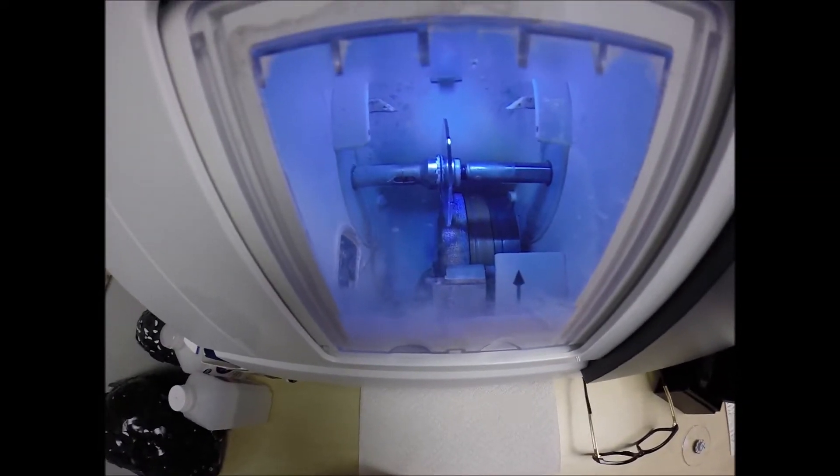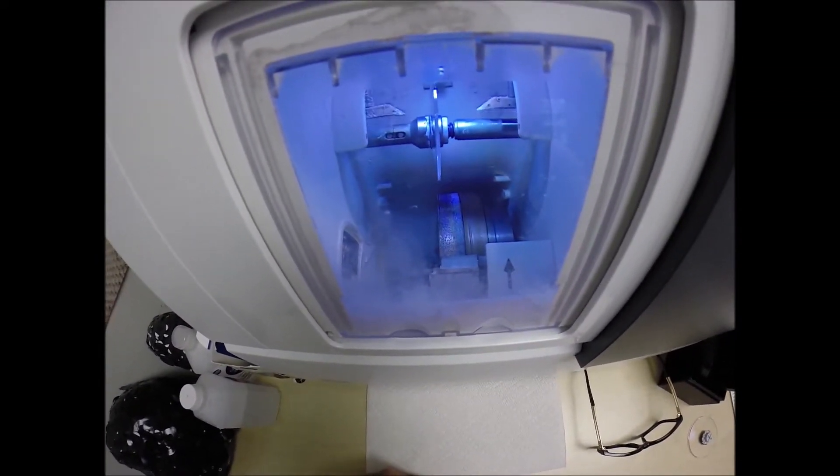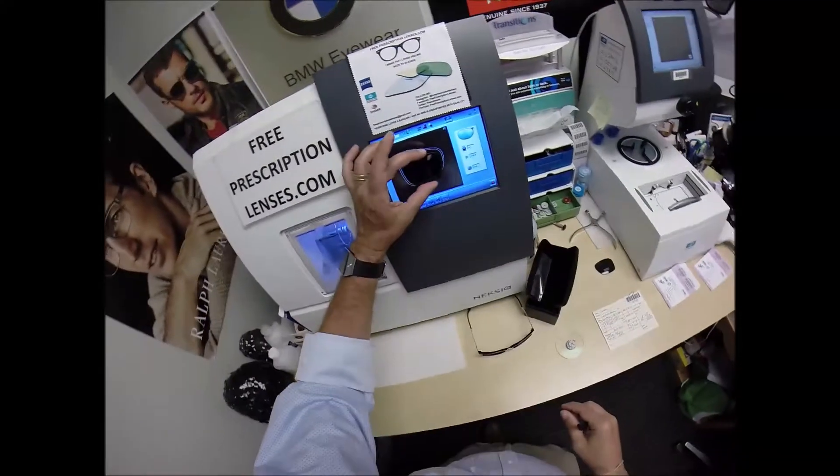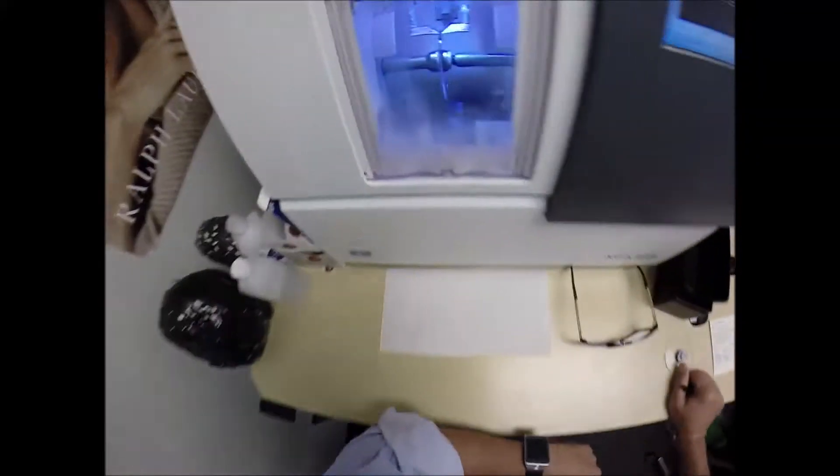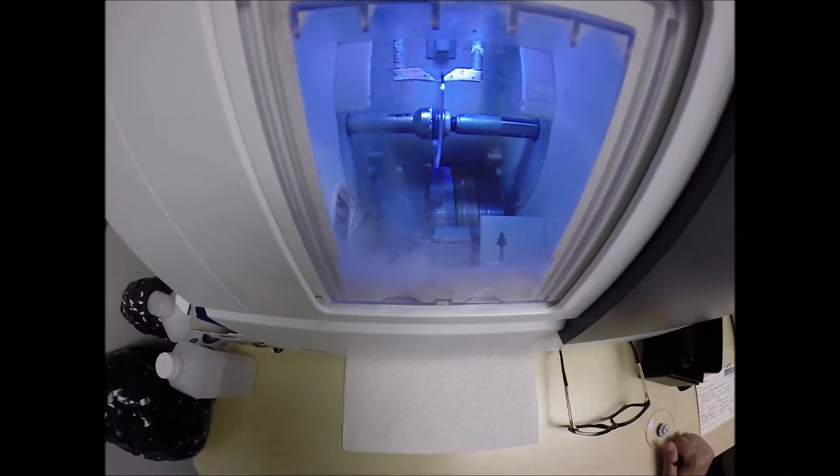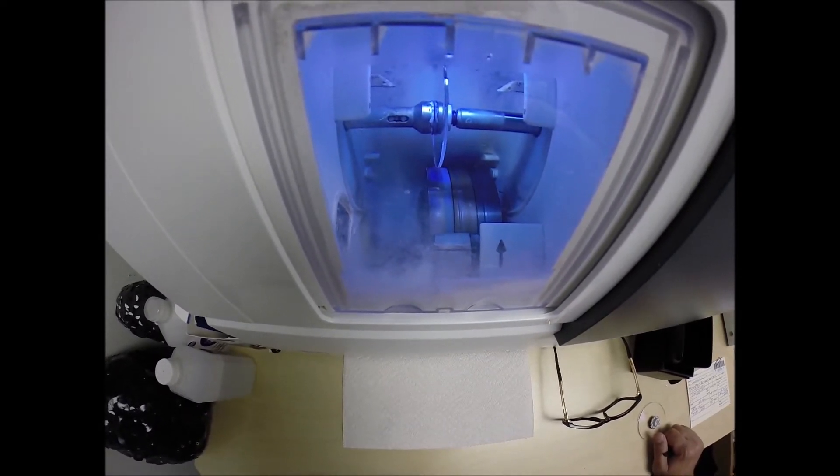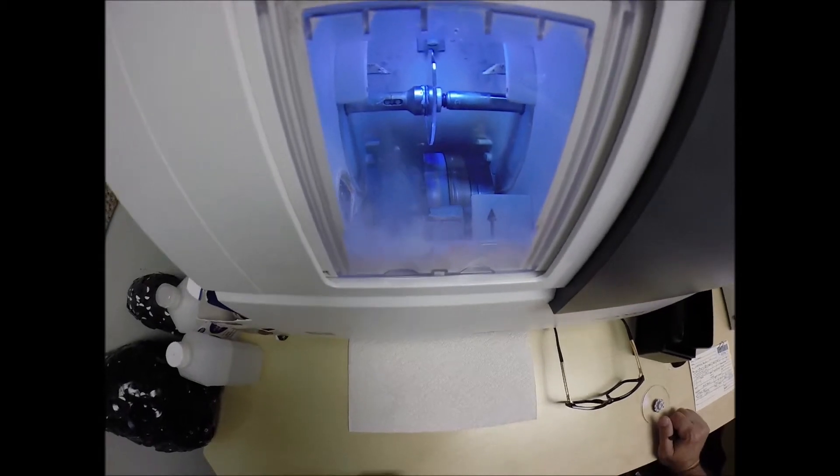So, the door closes. The clamp shuts. The lens is going to be traced by two white styluses, making sure that it's large enough to fit into the frame. And the old carpenter saying, measure twice, cut once, is measuring the thickness of the lens at every point to know exactly and precisely where to place the bevel, so you have the least amount of edge thickness showing.